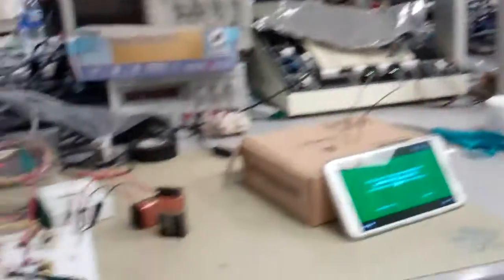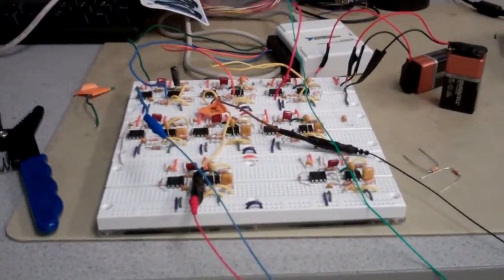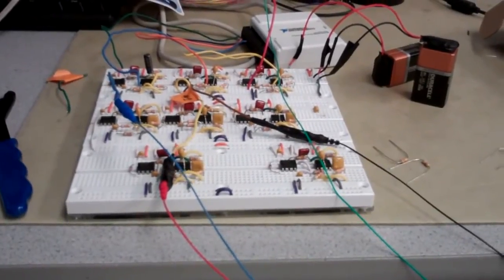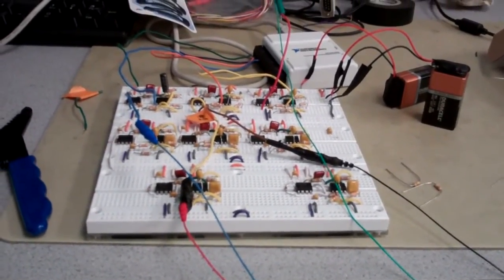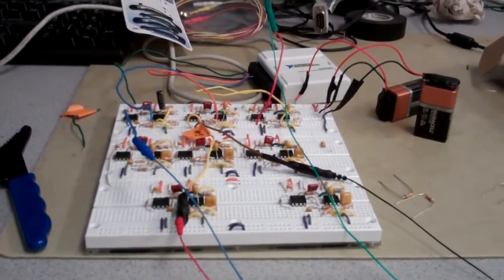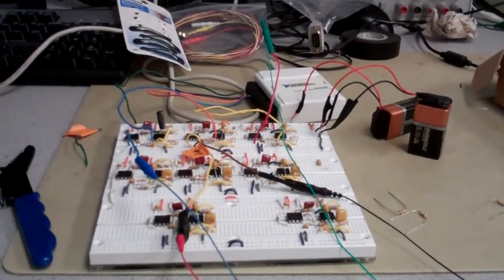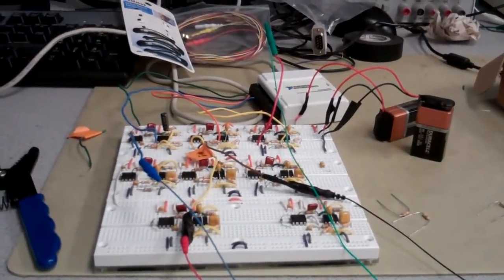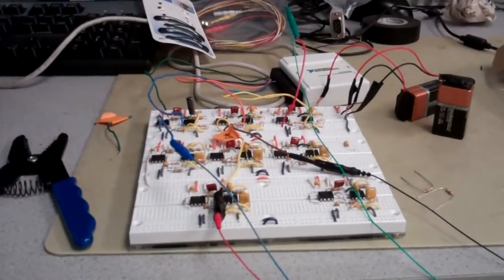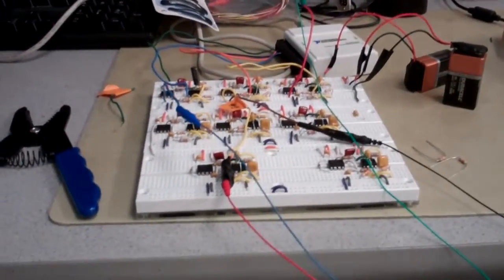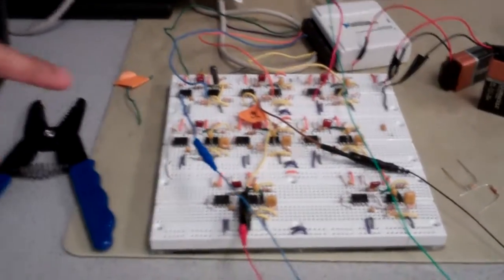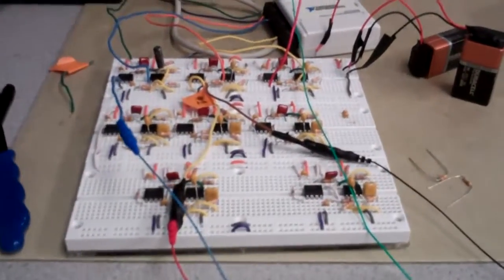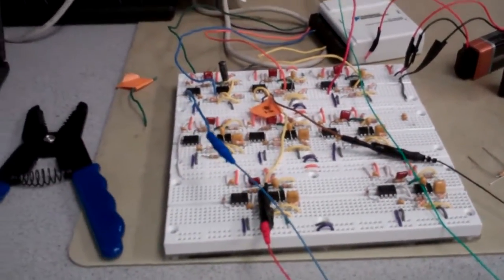And this is the home built EEG and it's isolated because it's running to your laptop and so there's no connection to earth ground and so you didn't have to have isolating amplifiers or anything. There's a lot of circuitry there. Yeah, this is for eight electrodes. Right now we're only running the top three because we've only hooked up three, but we designed the hardware to include up to eight. So you could expand this even more if you wanted to.